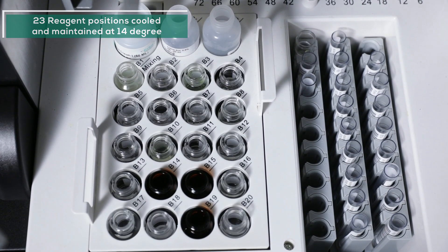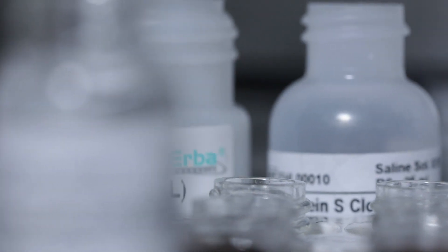Flexibility of using reagent bottles, cups, or microcups are of great value, minimizing wastage through dead volume.